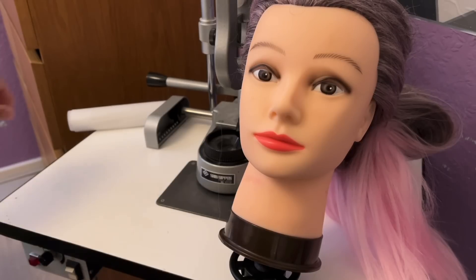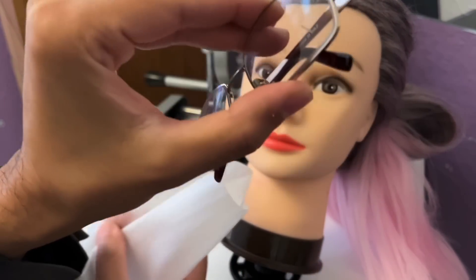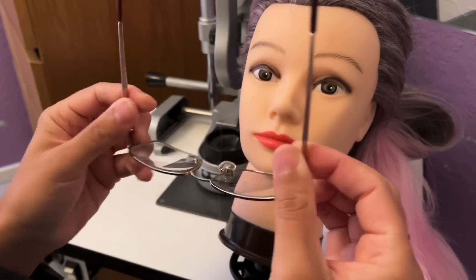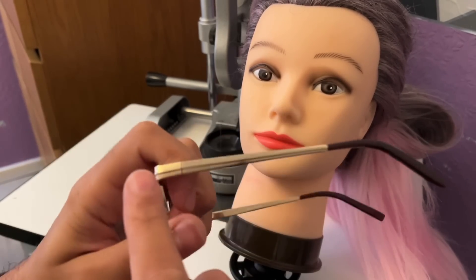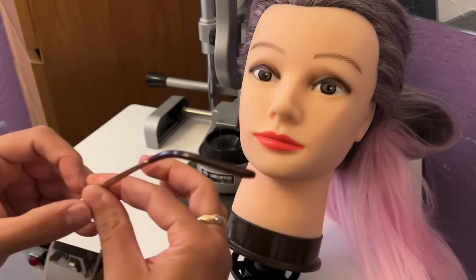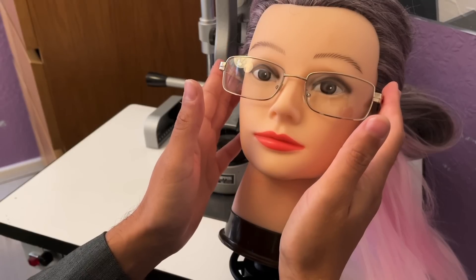The fifth recommendation — let's have a look in here. There's a gold frame. We do seem to be missing a pad there, but that can be sorted for you. There's no flexibility in these, but still a very solid gold frame with engraving at the side and brown tips. So you're not too keen on those — that's absolutely fine.